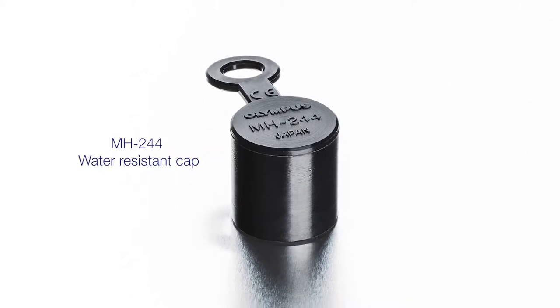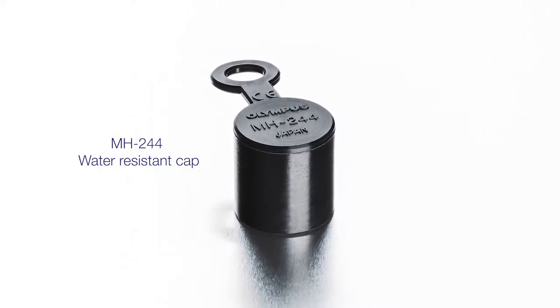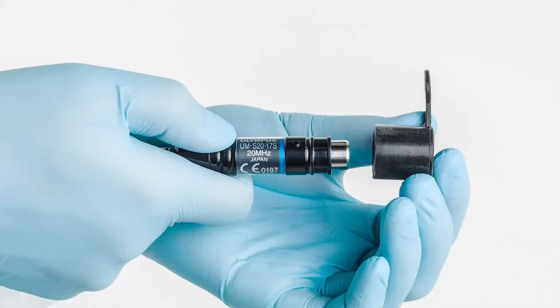Store the probe with the MH244 water-resistant cap. Attach the water-resistant cap onto the end of the probe connector.